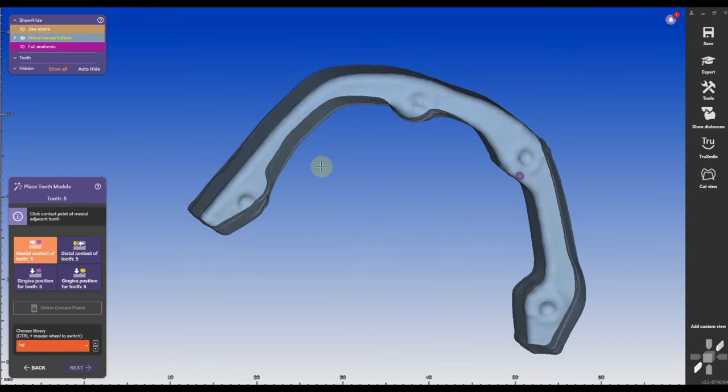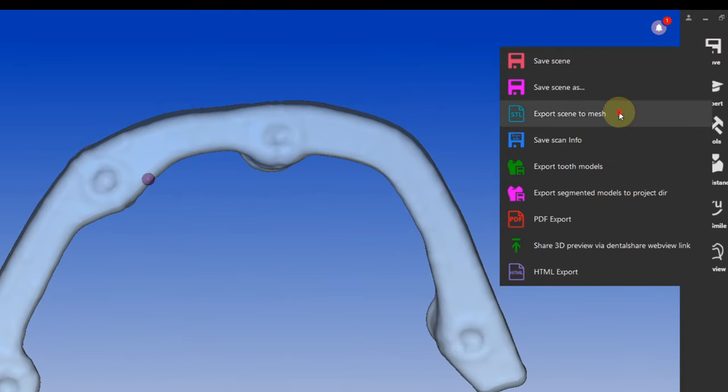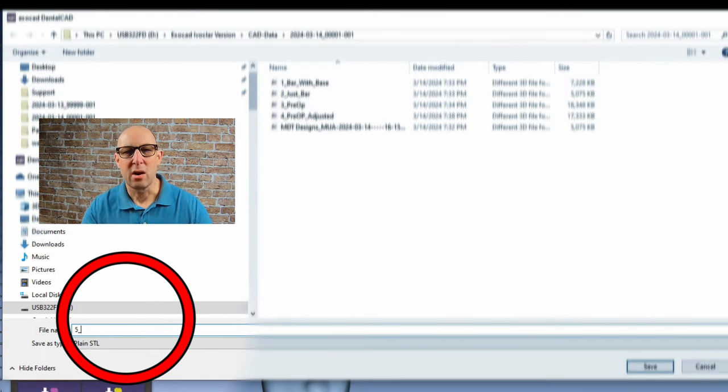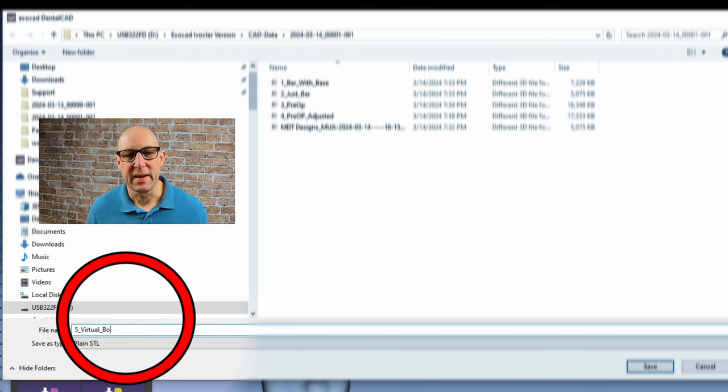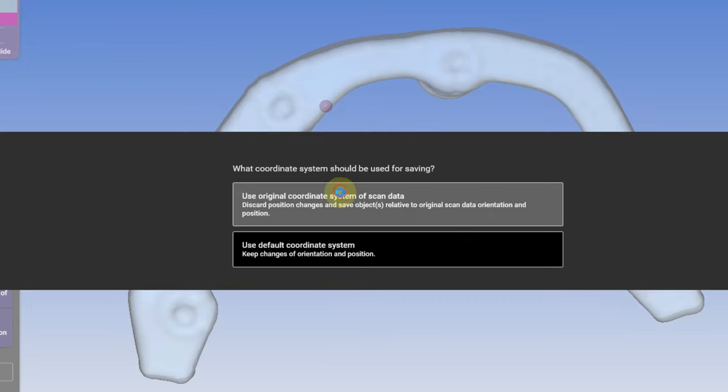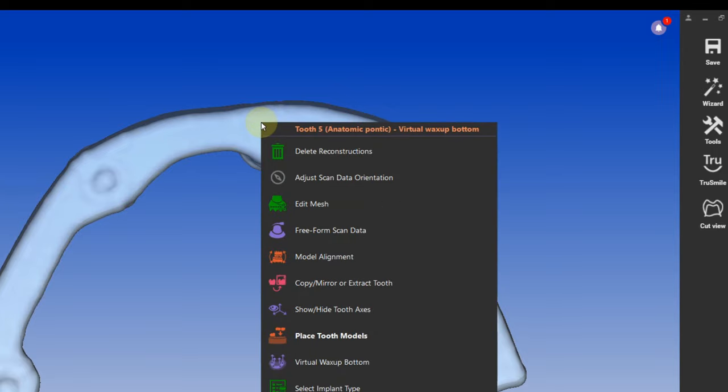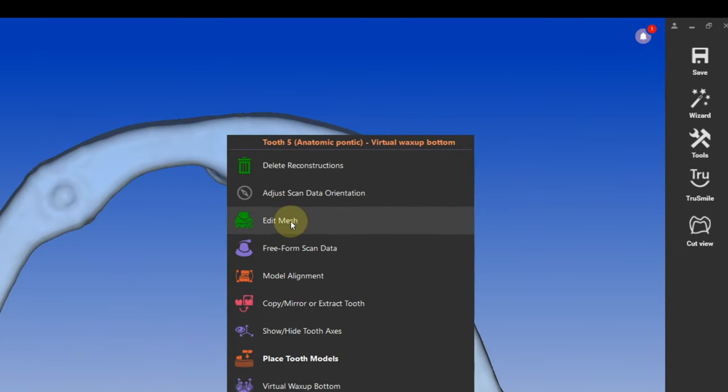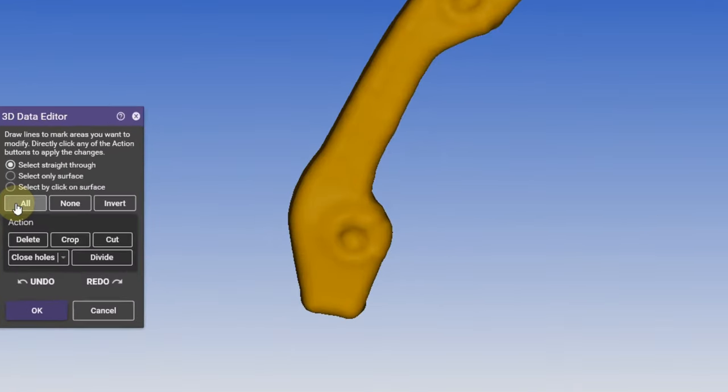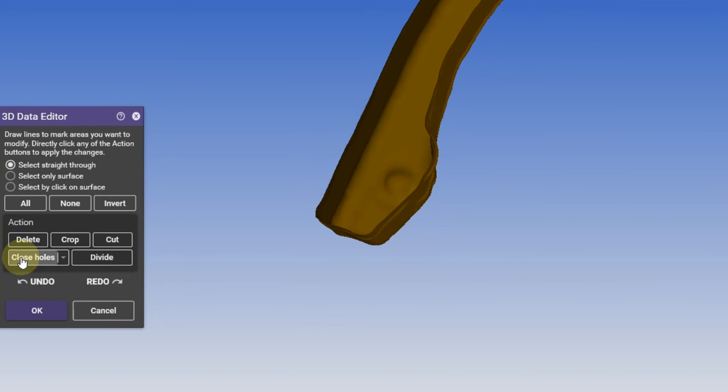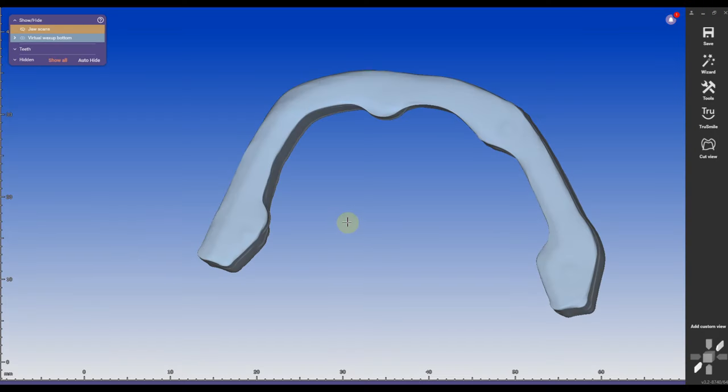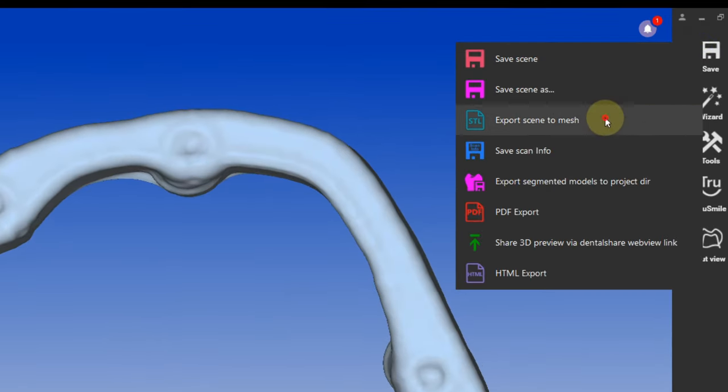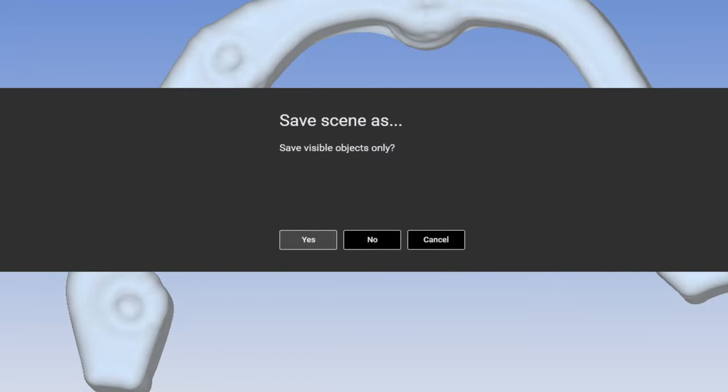Going to turn it around, only make this visible, only make the bottom visible and I'm going to save it out as a mesh, number five virtual bottom. I'm numbering always my scans so it makes easier for me. Save it in the scene, save it in the same coordinate system. Go to expert mode, edit mesh and then I'm going to turn it around and I'm going to click all. And now you can see, click on close holes and it will close all the holes of this virtual bottom. Now I have a nice tool, I can delete, I can look at it. I can then export it as a mesh, contact number six bar cutter. Click yes and save it out in the same coordinate system.